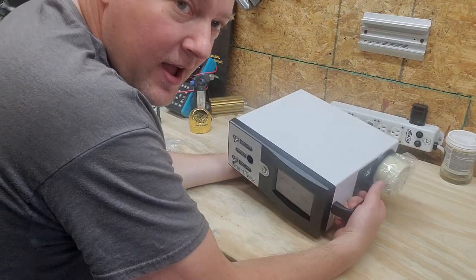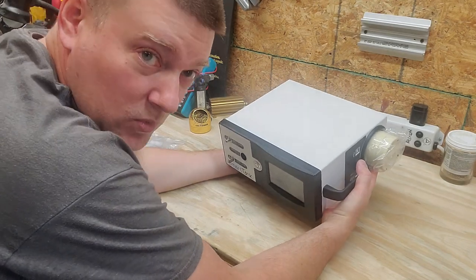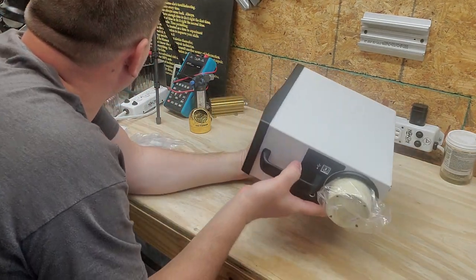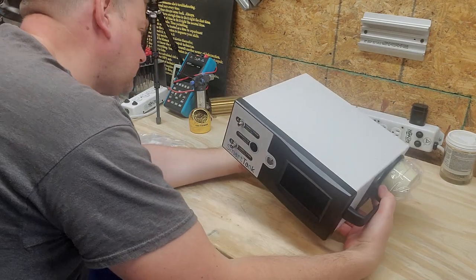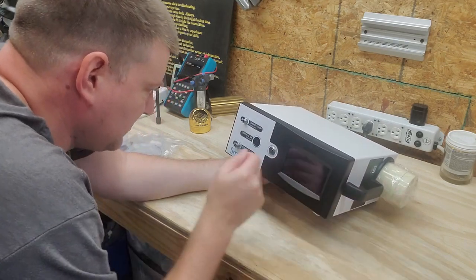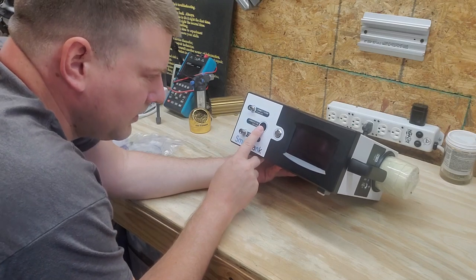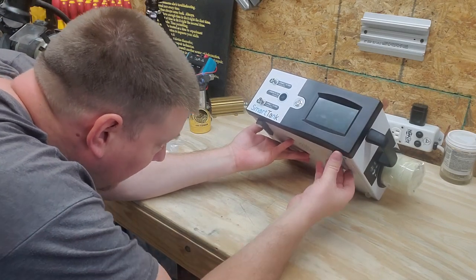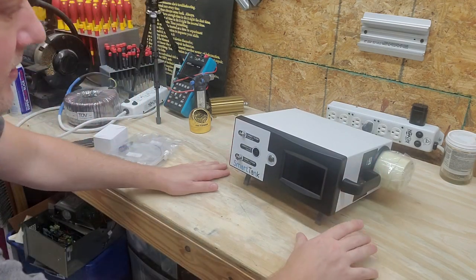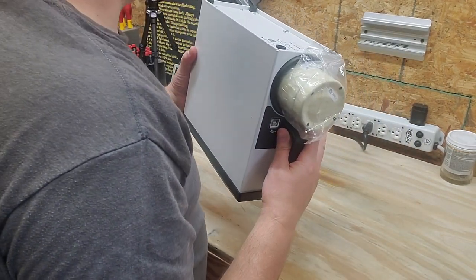This is the first time I've actually had my hands on the device. It's rather lightweight considering it's got the compressed gas already inside it. It's got one little filter on the outside, two connections — luer locks on the front — and it's got a carbon filter. It's also got little stand-up feet, nice touch. That's a very approachable angle and I'm going to leave it like that.